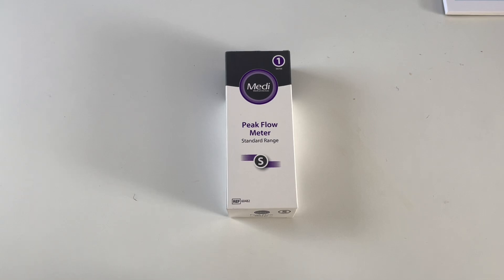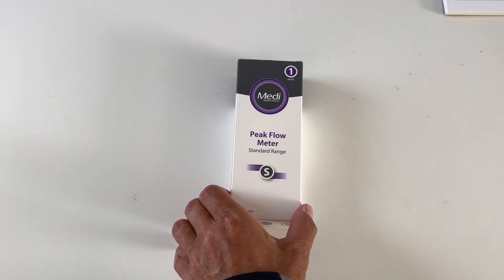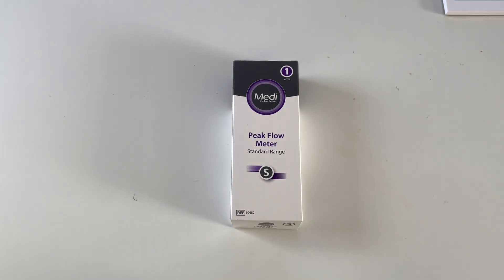I've been to the National Health Service and they've come up trumps and given me free of charge this lovely peak flow meter tester. So we're going to do a little unboxing and then I'm going to explain further.